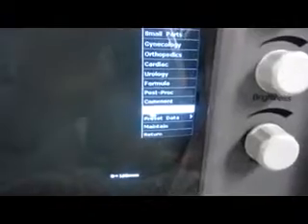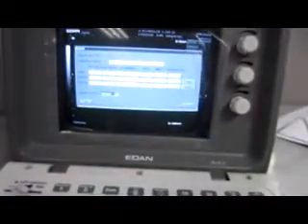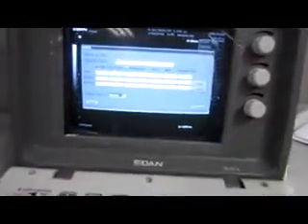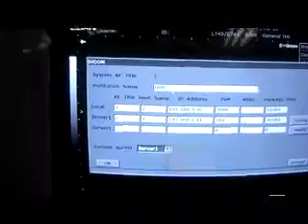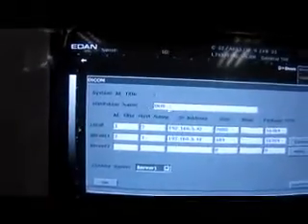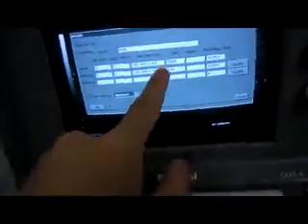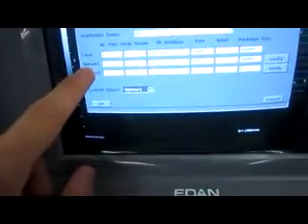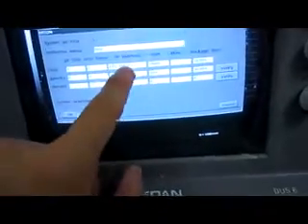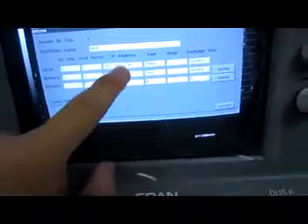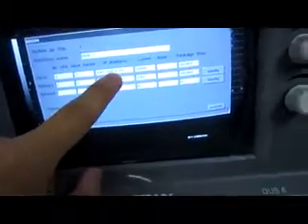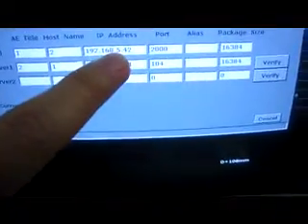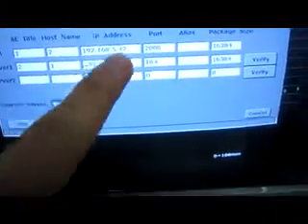Of course we can change the institution name here, but the most important thing, the two points we need to set, is the Local IP and Server IP. Actually the Local IP, whatever it is, we just need to set the Server IP.